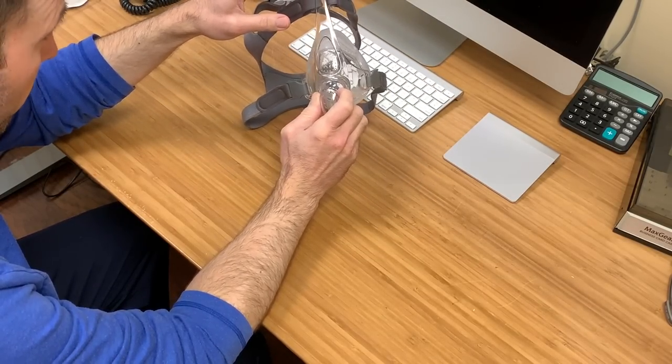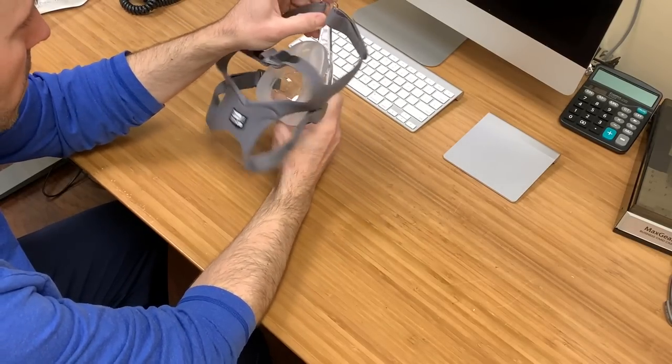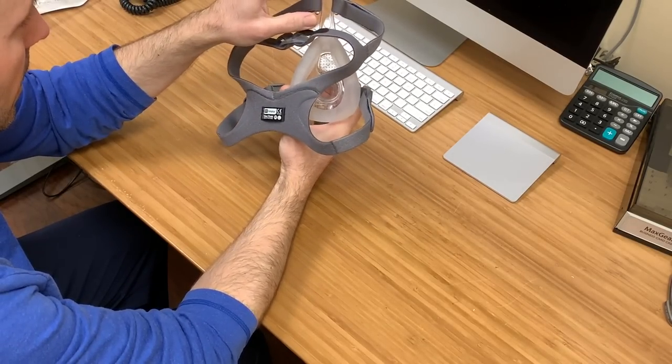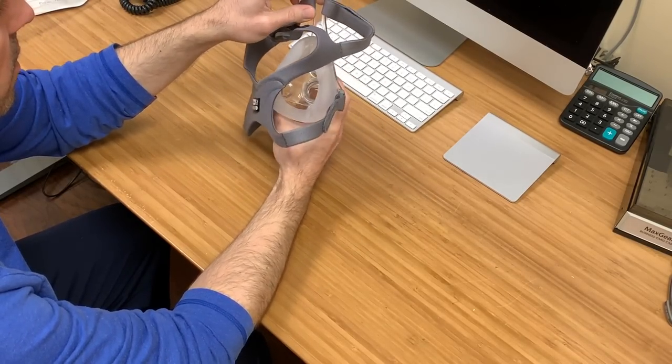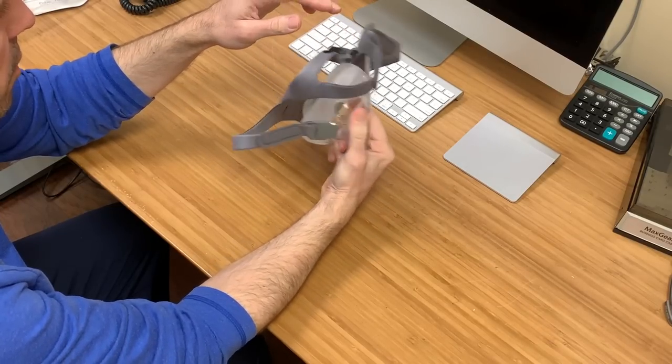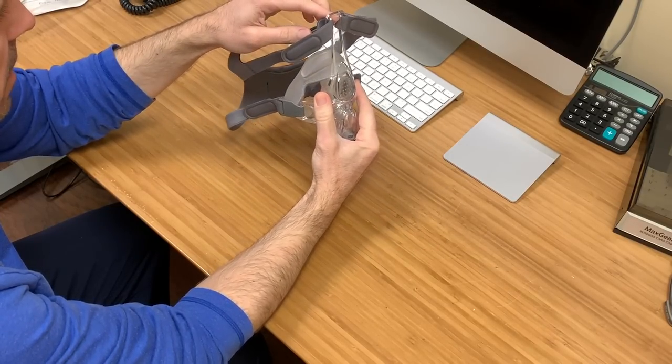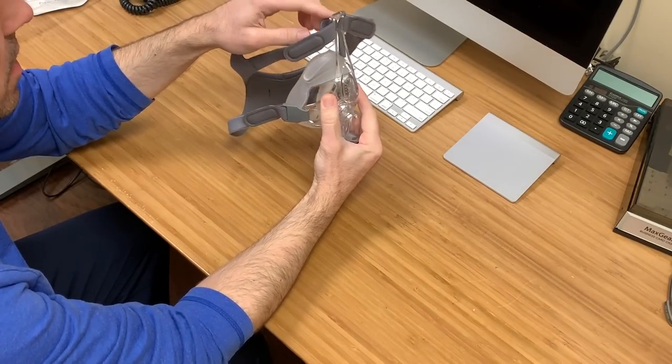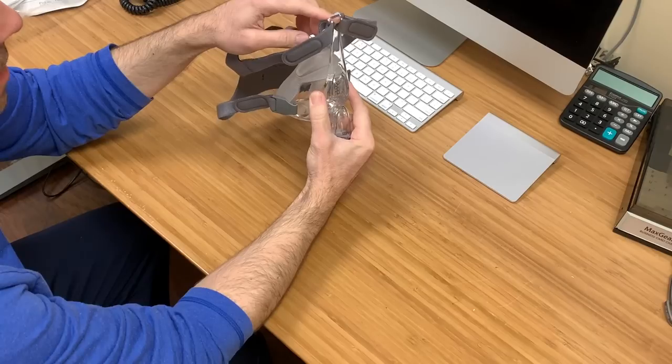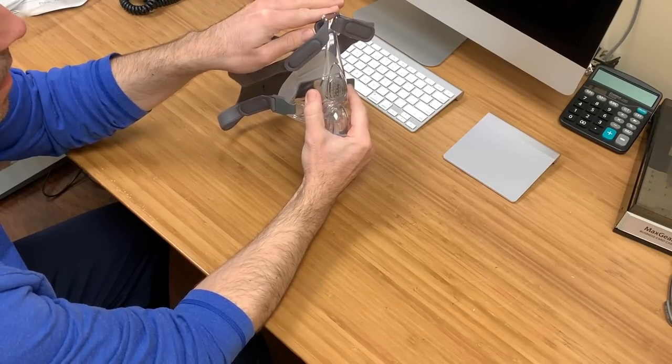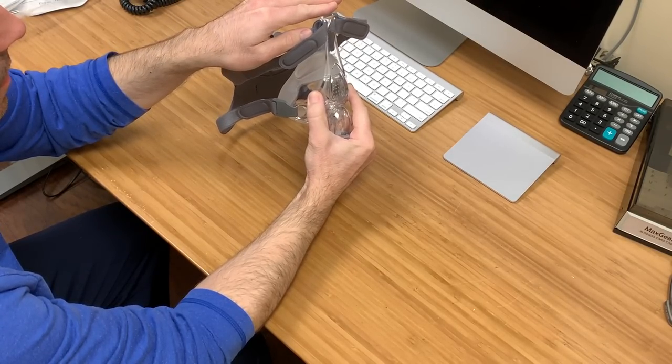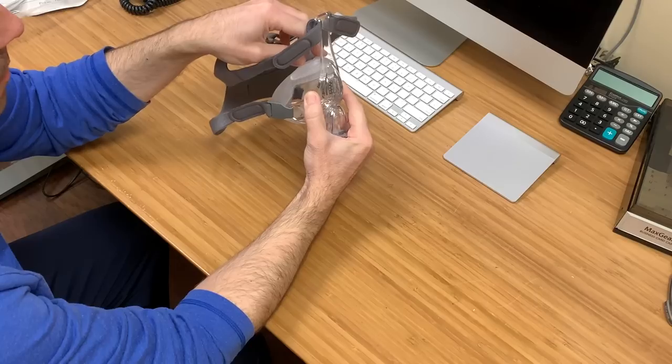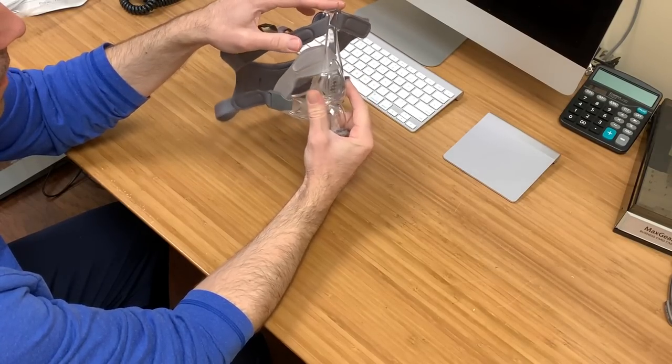This top thing, you'd think this goes on the forehead, but it doesn't. This is almost like a measuring guide. So when you put this over your face, if this is hitting your forehead, you have the mask on wrong. So this should be not touching and that means you'll get a good fit.